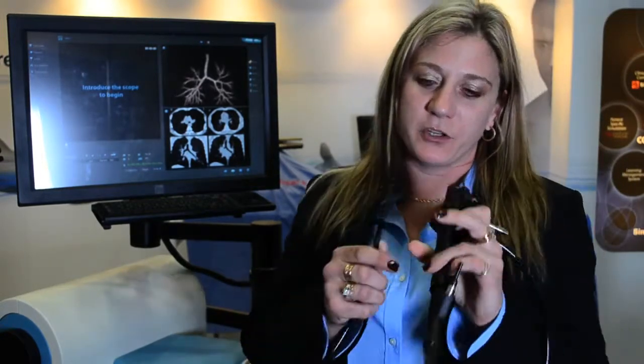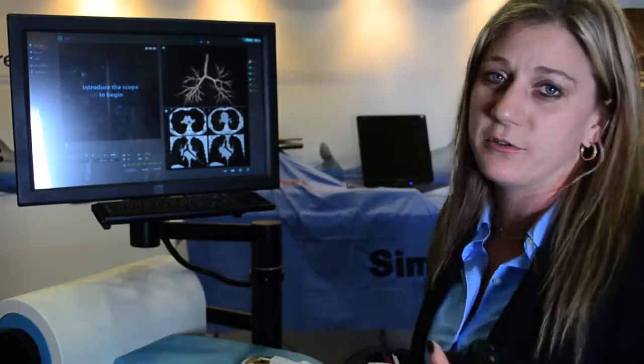To tell you a little bit about the GI side, we were recently selected by the committee SAGES to develop FES, which is the Fundamentals of Endoscopic Surgery, and it's something we are very proud of. On the other side, we have our pulmonary cases, and I just want you to know that we use all real scopes with just a modified tip — it's an actual scope that surgeons use in the OR.